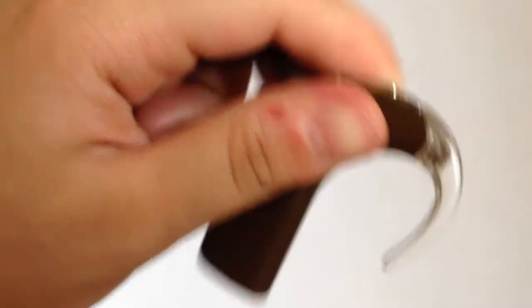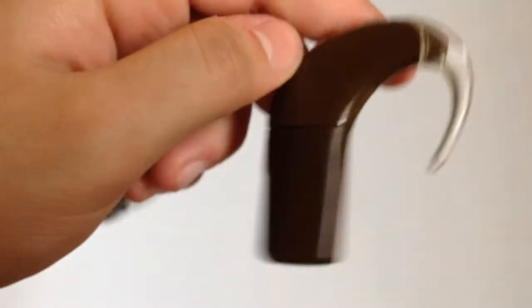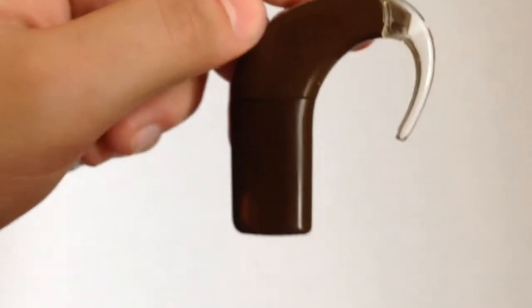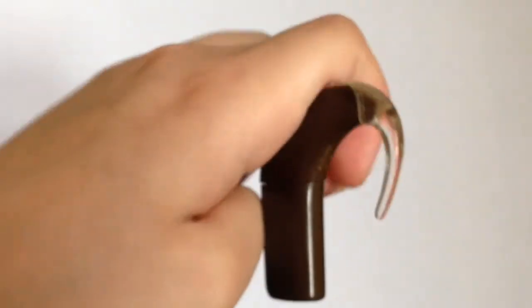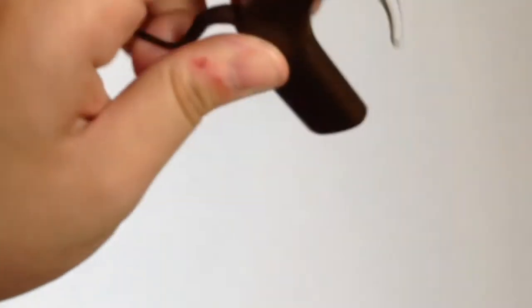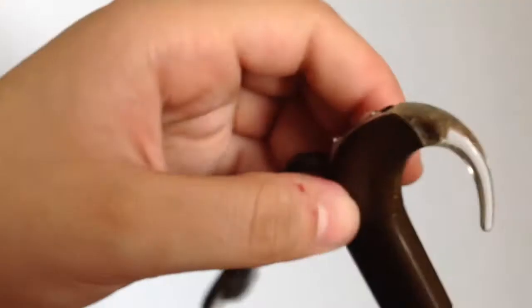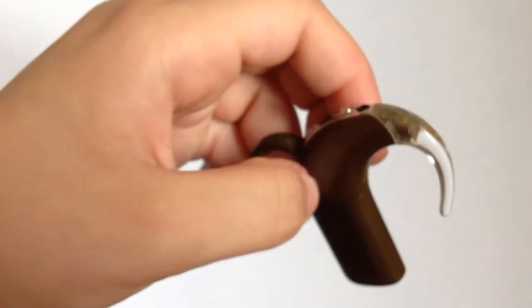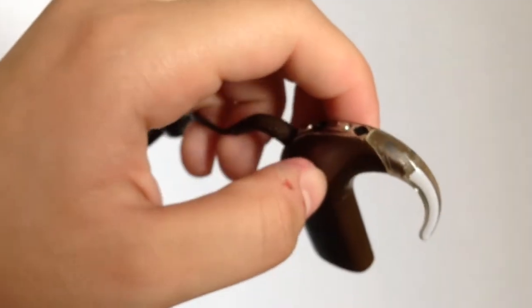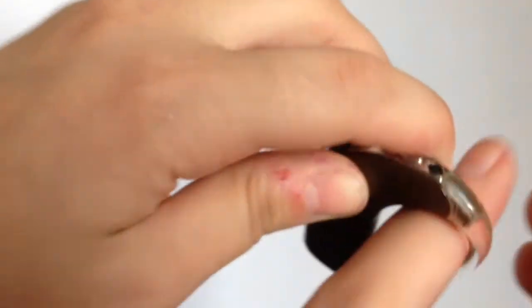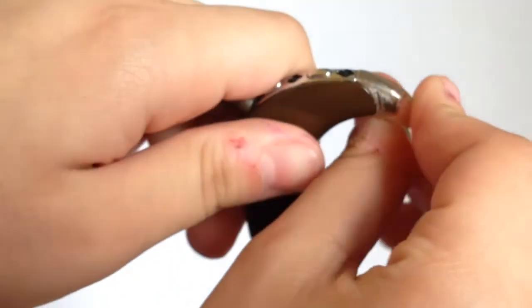Now, that was an okay method, but I kind of get nervous when doing it and I wouldn't be surprised if you do too. These things aren't cheap. So I'm going to show you guys a safer way to do it maybe. This one is a bit harder, I have to say, but I feel safer when I do it. But it kind of takes a few tries, so I'm going to try to show you as best as I can.